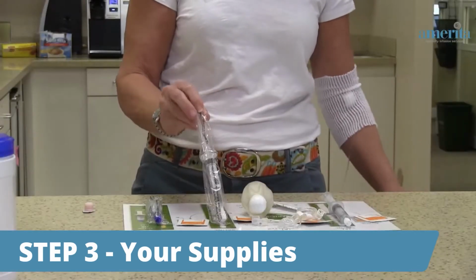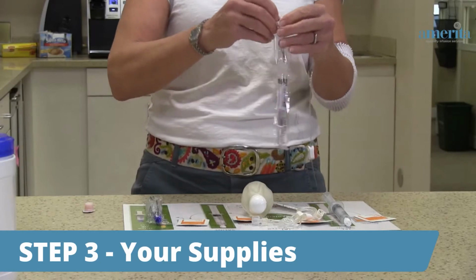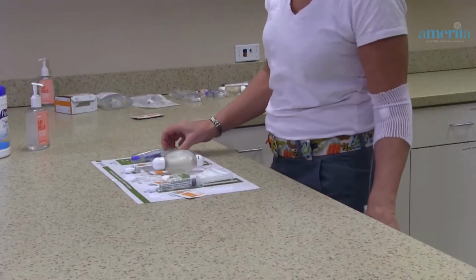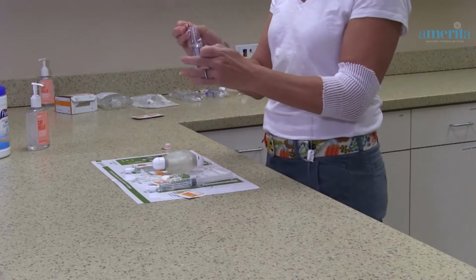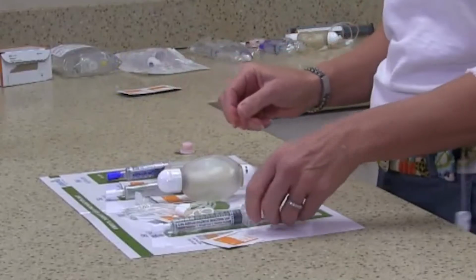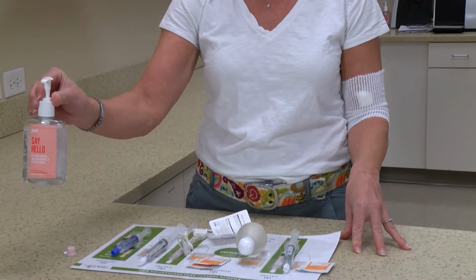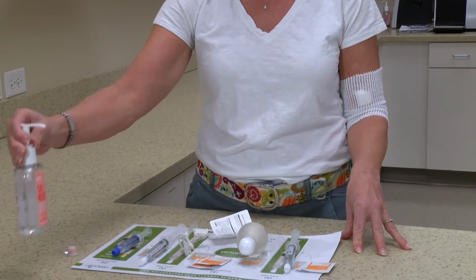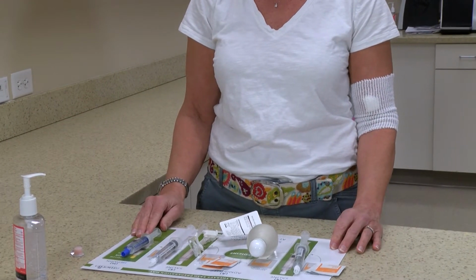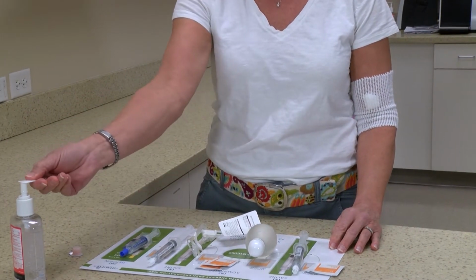Place the antiseptic pads on the mat as well. Because you will be asked to rewash or sanitize your hands frequently throughout this procedure, it is recommended that you also have a bottle of hand sanitizer close to you during this process. So now, after you've gathered all the supplies needed, is the time to sanitize your hands.